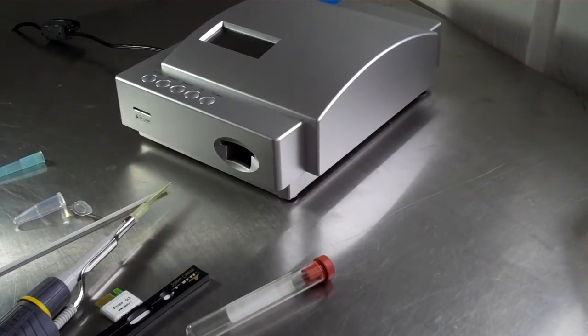If you're doing it professionally like I do, I've been doing this for years, and now thank God I have this machine available that I don't have to go to a vet or send out to any lab to do any test.